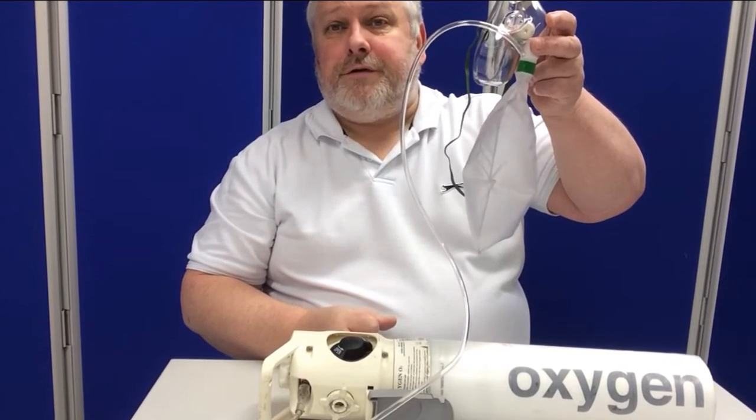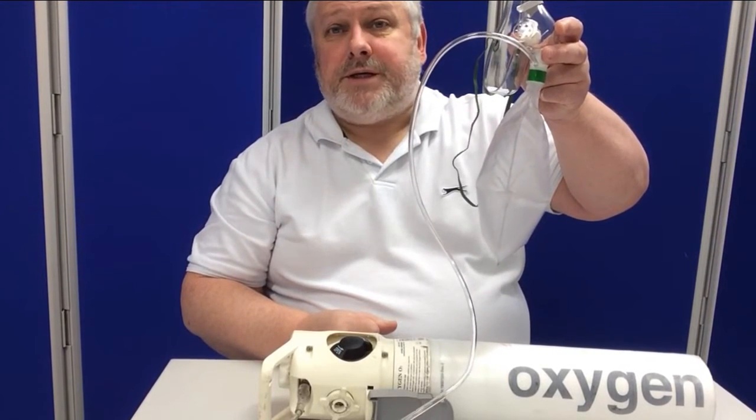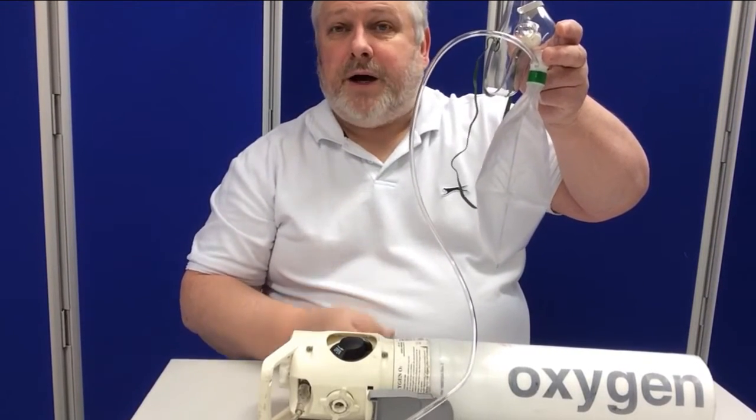At the moment, it's sitting on 15 and I'm going to turn it down step by step so you can see how the bag reacts.